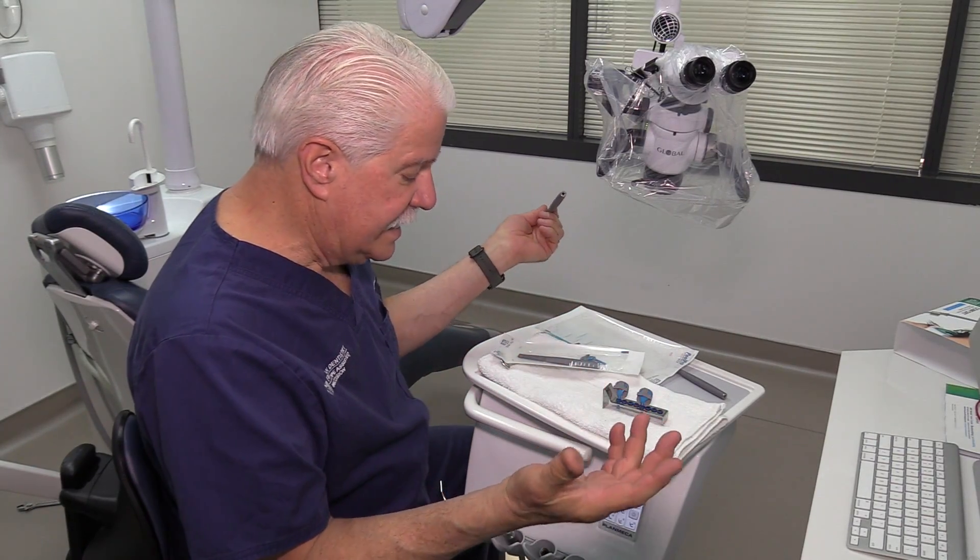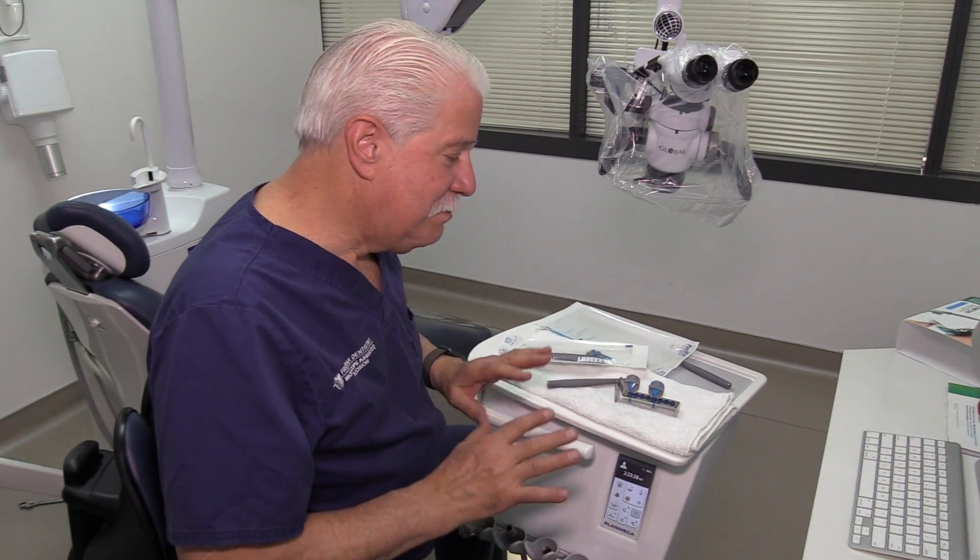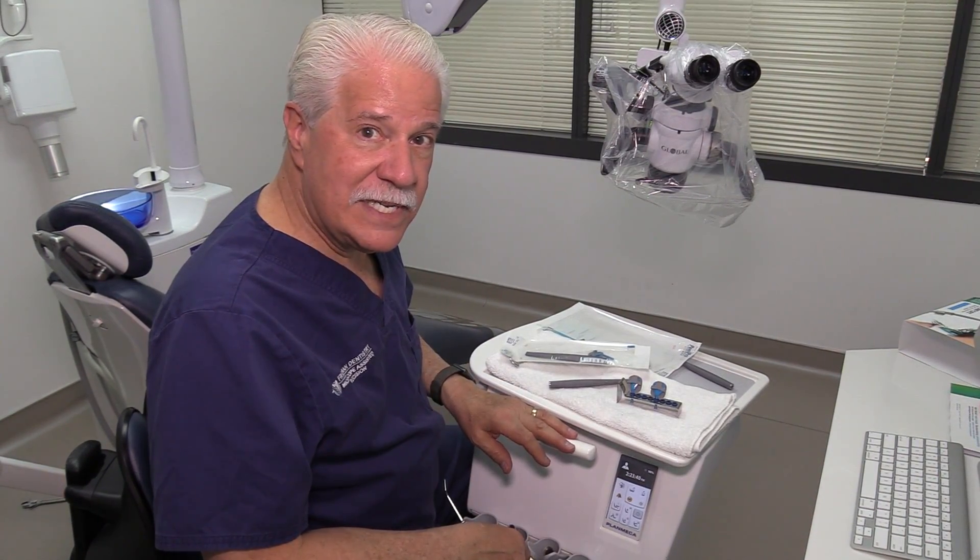It's neat, it's clean, it's complete. We're excited to use it. First thing tomorrow morning we're going to use it in a clinical case and we'll show you the video. But it looks very slick.